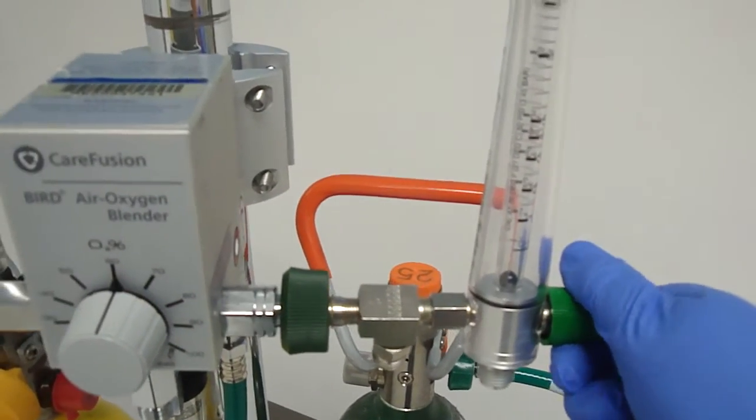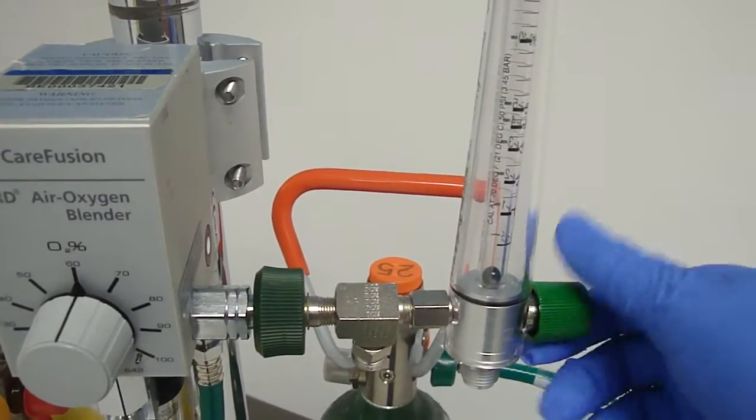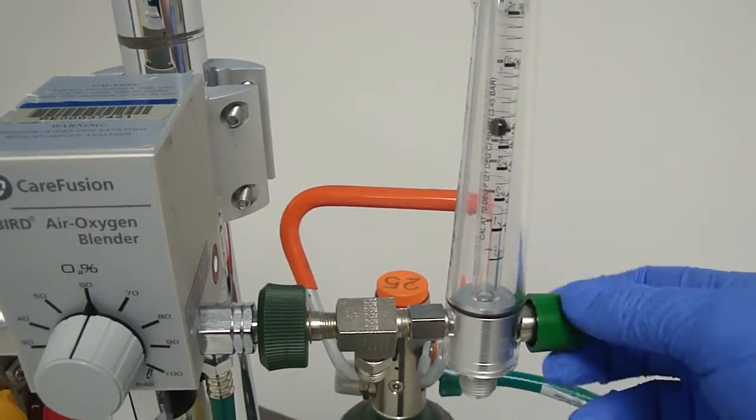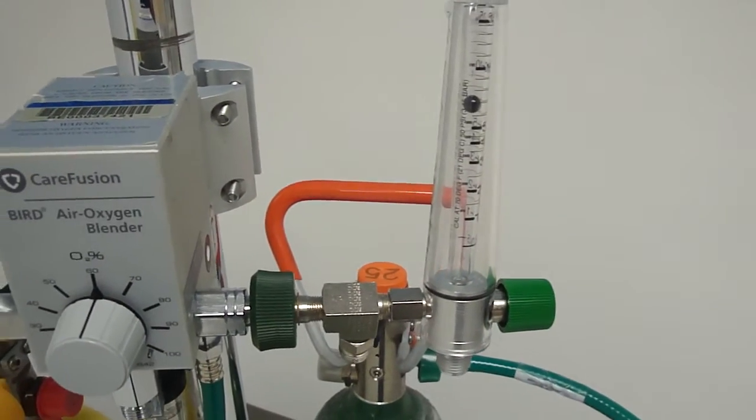Then you'll turn on your flow meter to your desired flow level, attach your device, and transport your patient.